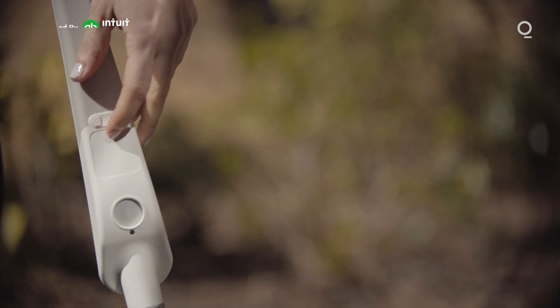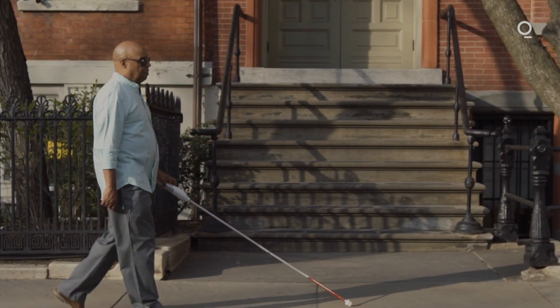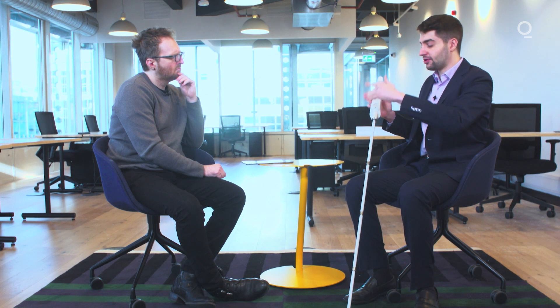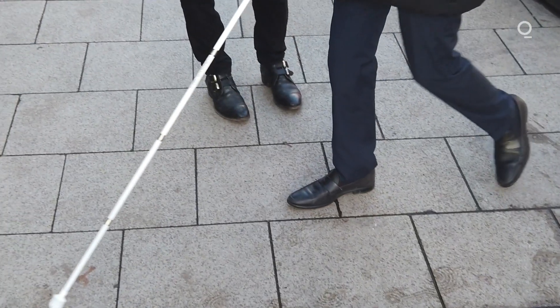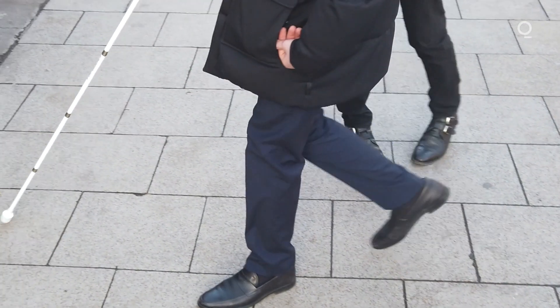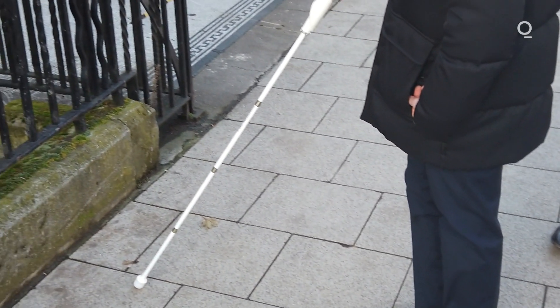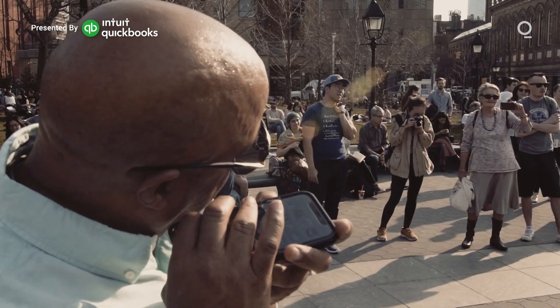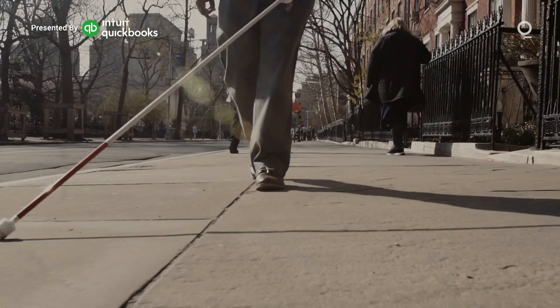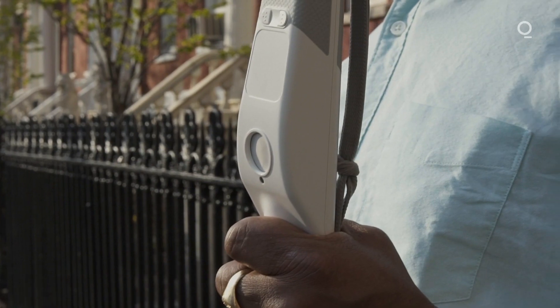It's got the ultrasonic sensor up front over here, which gives you upper body obstacle detection. Is this a camera essentially? Well, simpler than that — it literally is just ultrasound. WeWalk knows where the obstacles are because of the bounce back of the ultrasonic waves. You can actually set how far WeWalk picks up these obstacles, so you can detect things that are just above your head to things that are by your chest — things which the typical cane will definitely miss. If you think of things like tree branches and you're just walking down the street, how can you possibly pick up on something that's low hanging? The cane has a touchpad up front, as well as a speaker and a microphone, a compass, a gyroscope, and an accelerometer all built into it.